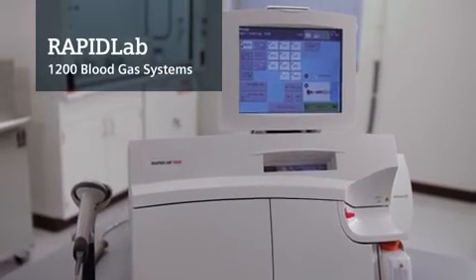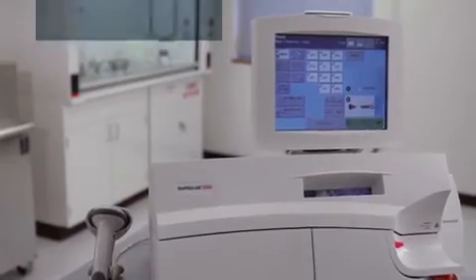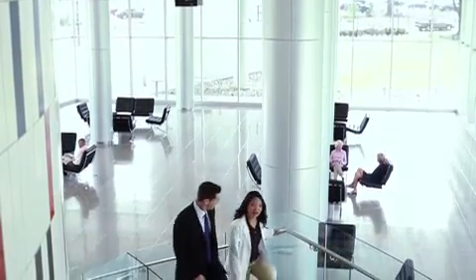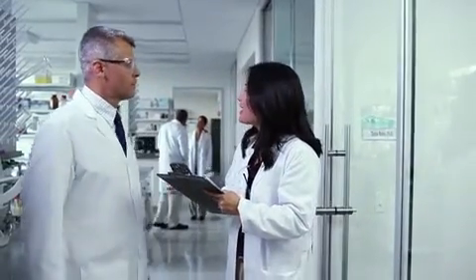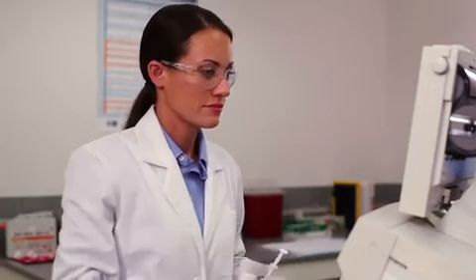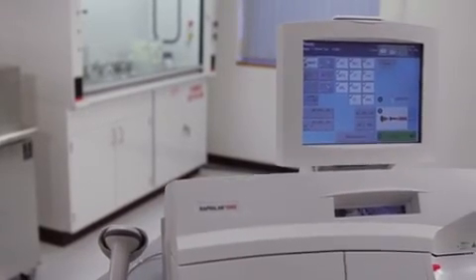The RapidLab 1200 system is just one of the latest innovations from Siemens Healthcare Diagnostics, a global company fully committed to critical care testing. Our solutions focus on helping clinicians make timely and accurate decisions for their patients while ensuring operator proficiency and success for the lab, day in, day out, and well into the future.